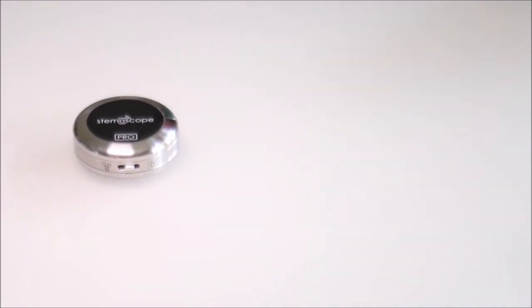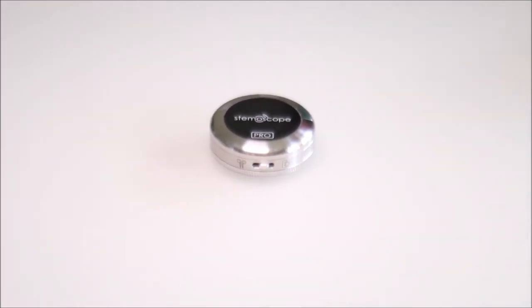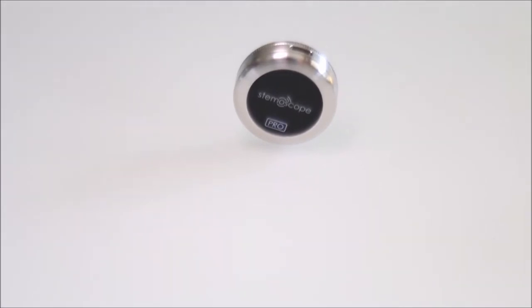Introducing the Stemoscope Pro, the wireless stethoscope designed for every medical professional.